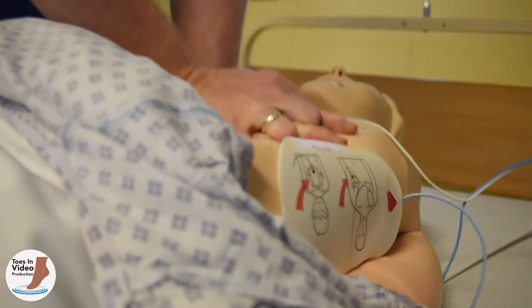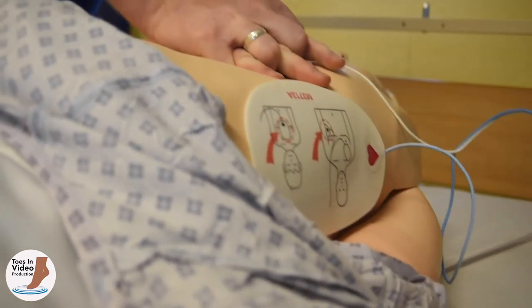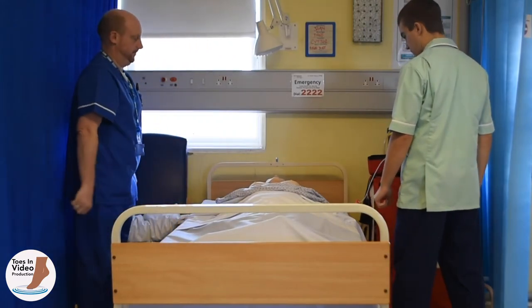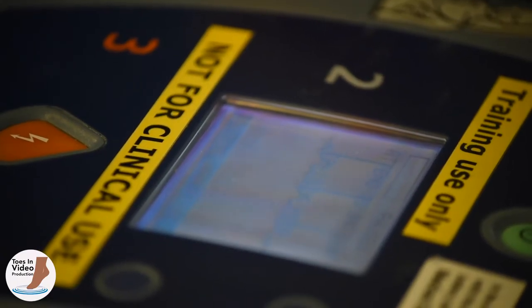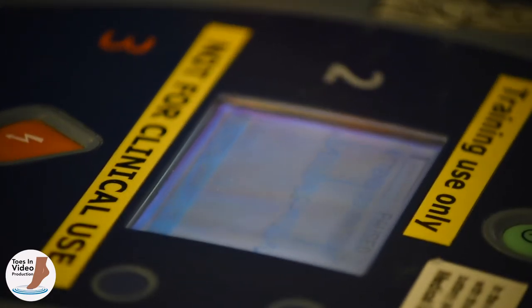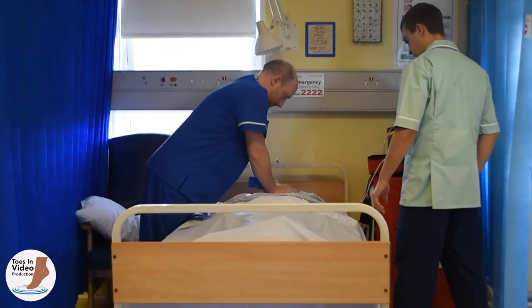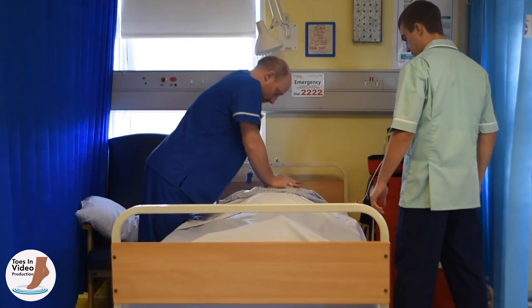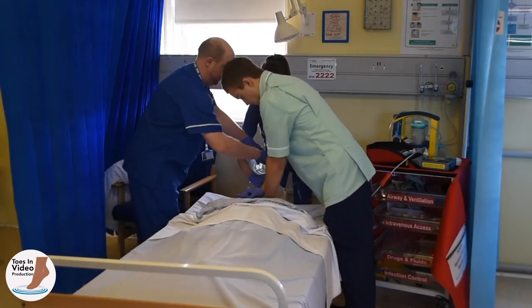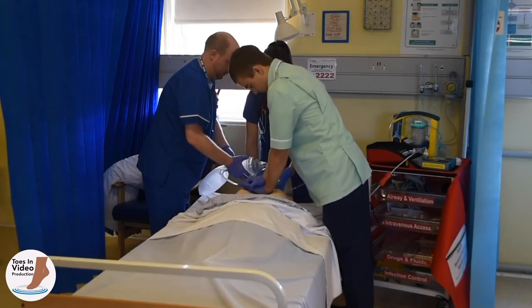The defibrillator will time you for two minutes before asking you to pause for an assessment of the patient's heart rhythm — let the defibrillator time this two-minute period and respond to the verbal prompts. Do not be confused by any event timer on the display screen, which measures the time since the device was switched on including pauses for assessment and any delays. The verbal prompts will indicate when to begin and when to pause a two-minute cycle of CPR. If you are becoming exhausted or no longer able to provide effective chest compressions, plan to swap with another rescuer, perhaps at the next set of ventilations.